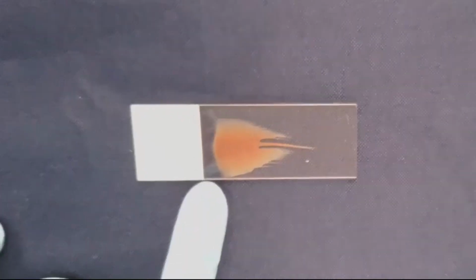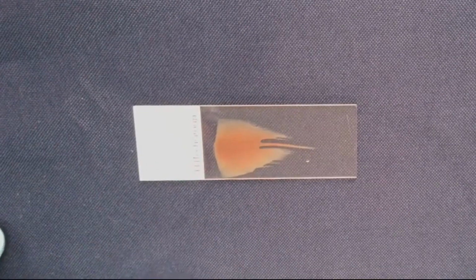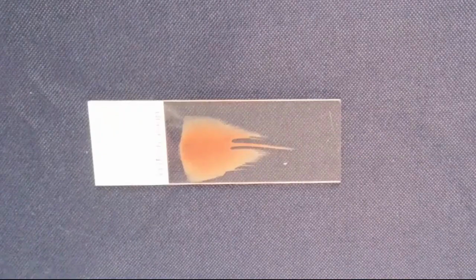This is another very short, thick smear with little to no monolayer. Again, it could have been affected by the angle of the pushing slide or the pressure. One interesting difference here are the clear lines down the middle of the smear. This could have been caused by debris on the slide before applying the drop of blood, or maybe from impurities on the edge of the pushing slide.